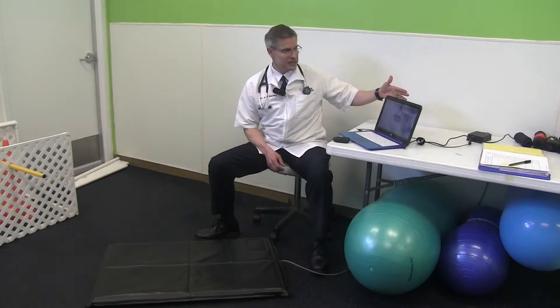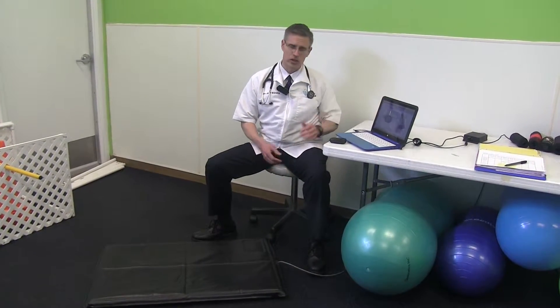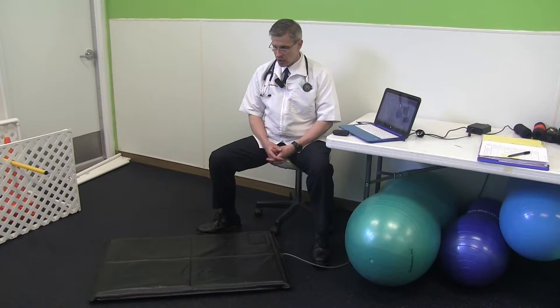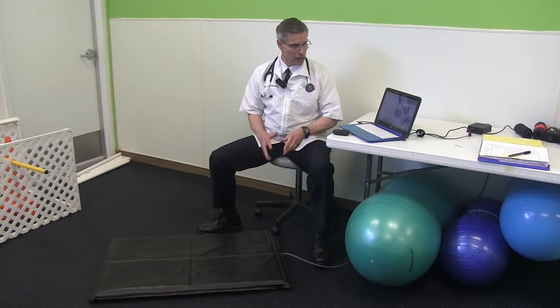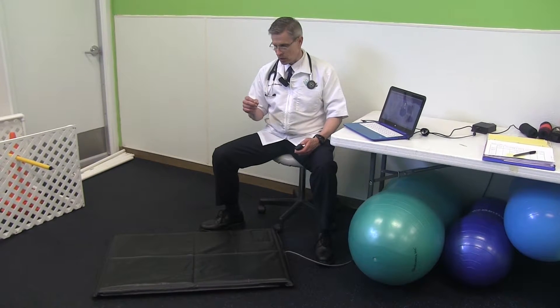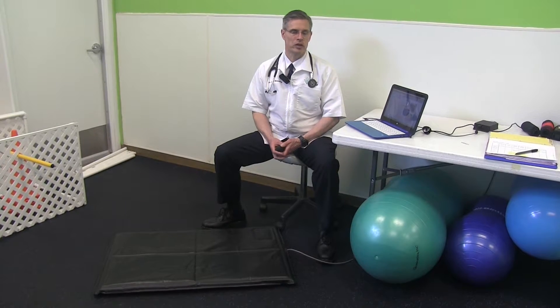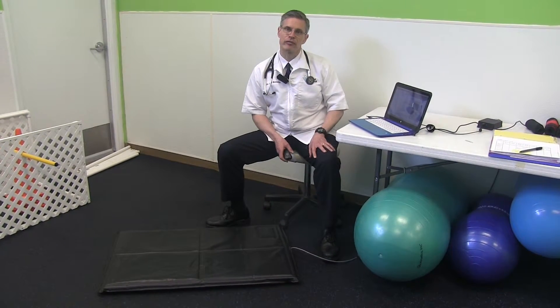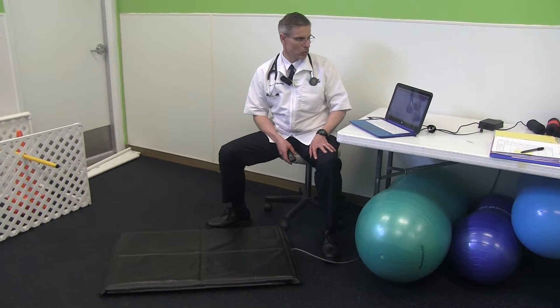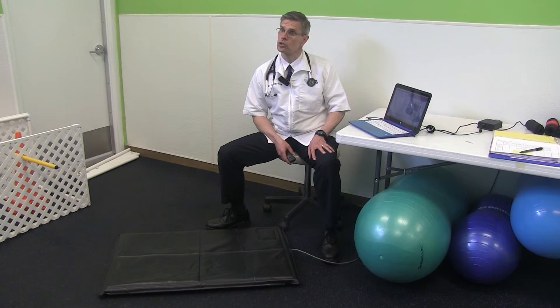The clients love to get the printout of this — it's really straightforward. Compared to a force plate analysis that I'd have to have a full-time person analyzing, this is something we can get very quickly on a regular basis. My normal staff can accomplish this, and we get a really client-friendly printout that shows the progress or the problem they're having. It's made for a nice communication tool with the client.